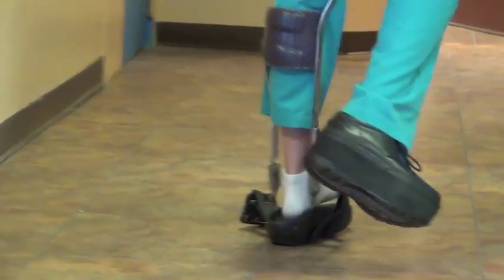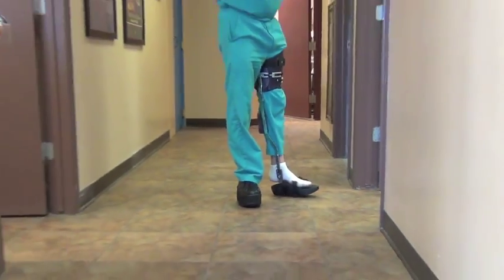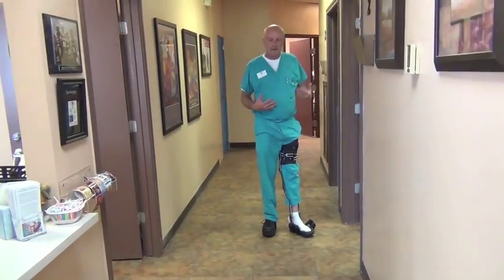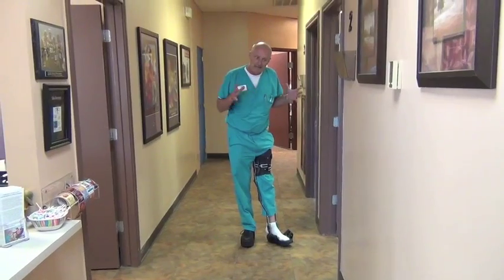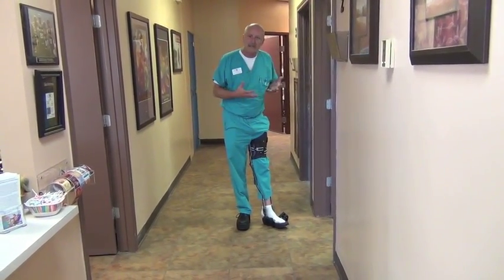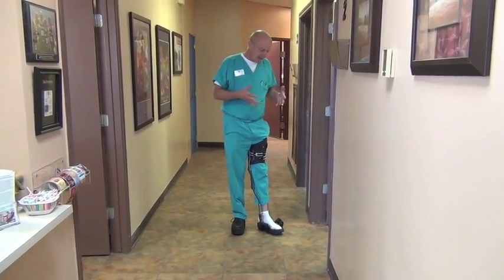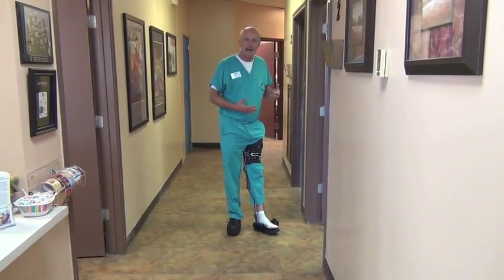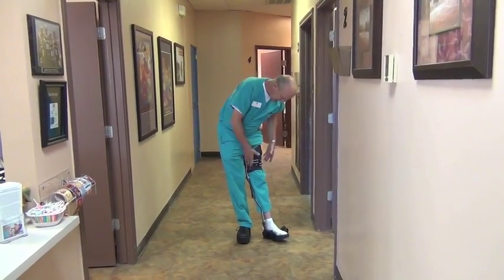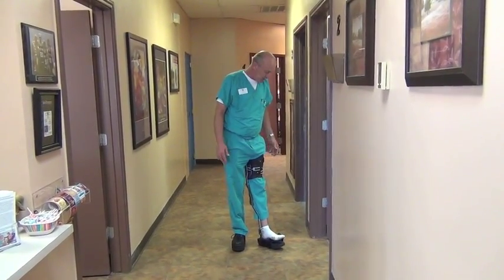I've got all my weight on there and my heel still has not touched — it is still just suspended. Basically, I'm looking for patients, preferably to begin with because these are our initial trials. I would like patients that have overall good health, who have good shape and contour to their leg. I don't want people that are real heavy or obese with a lot of flaccid tissue — basically people in good health. Just for our first 10 or 20 patients to work out the bugs, dealing with people that don't have multiple medical issues or circulation issues.